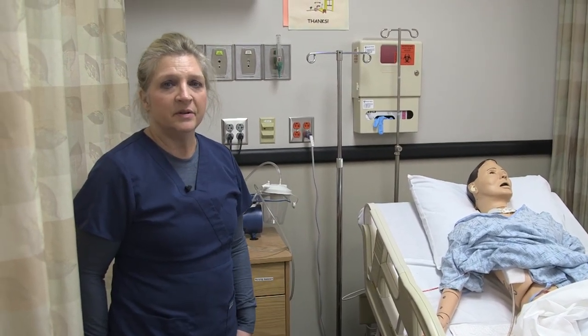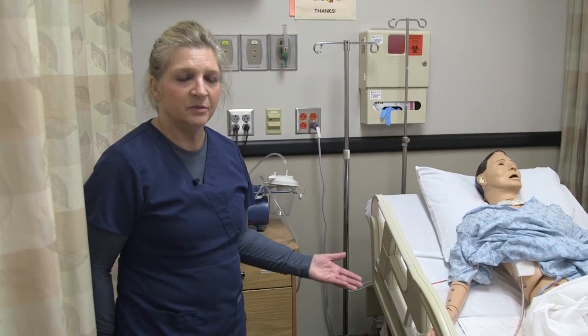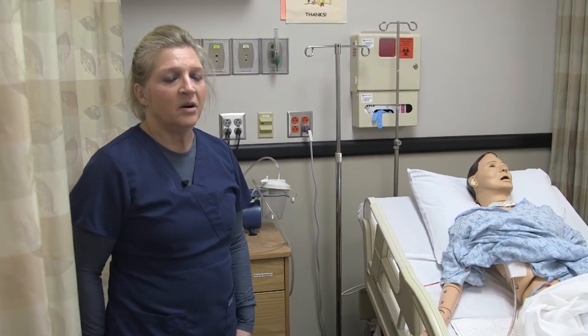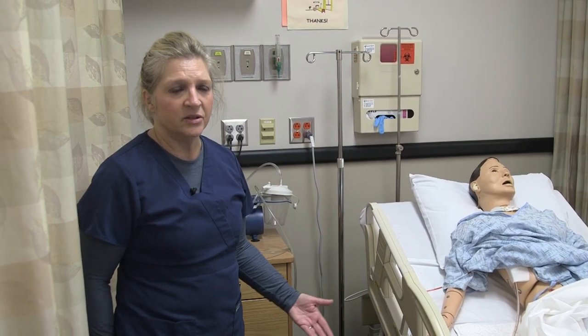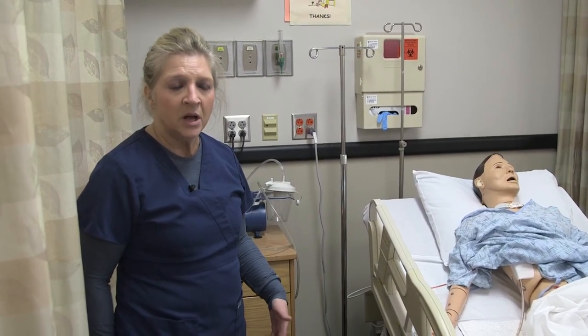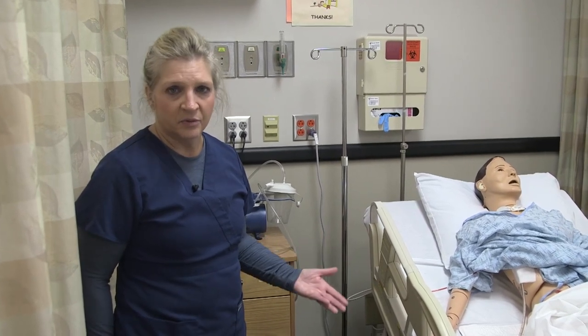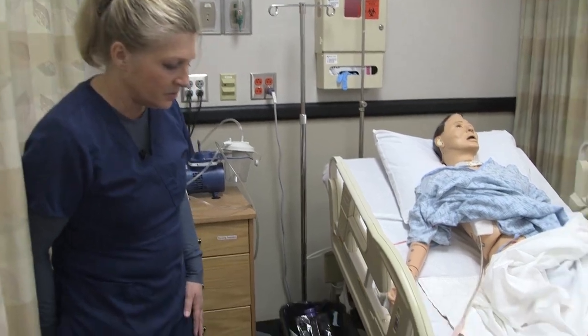As always, you want to make sure that you are verifying your provider's order, noting what type of chest tube drainage system the patient is in need of, and also whether we are setting up a chest tube for air removal or for fluid or blood removal — because there's going to be a little bit of difference in those.